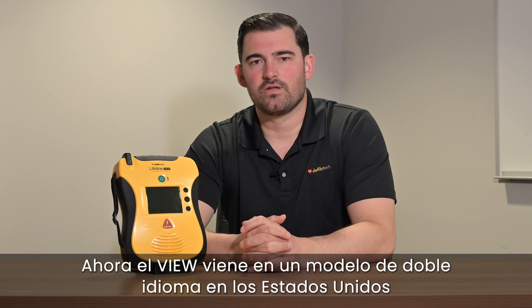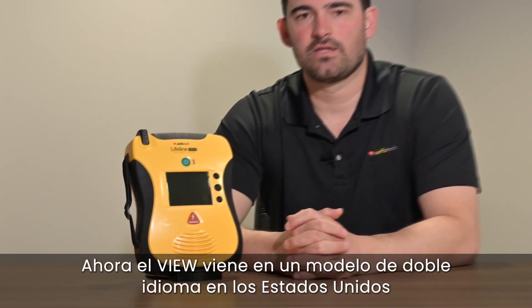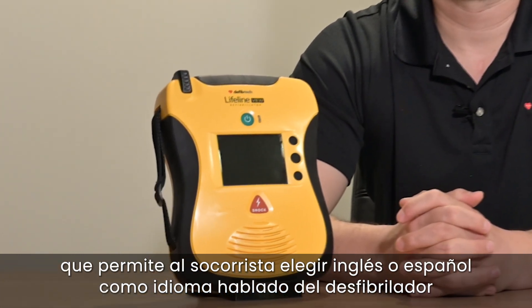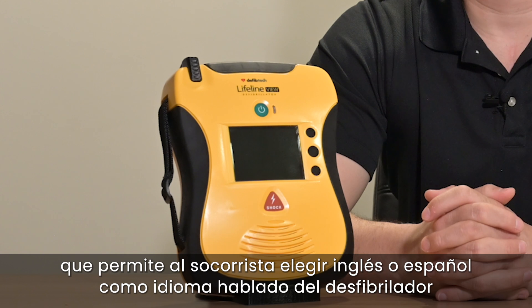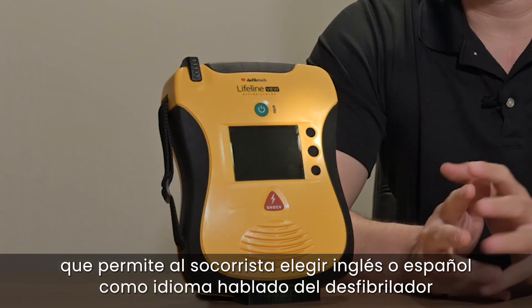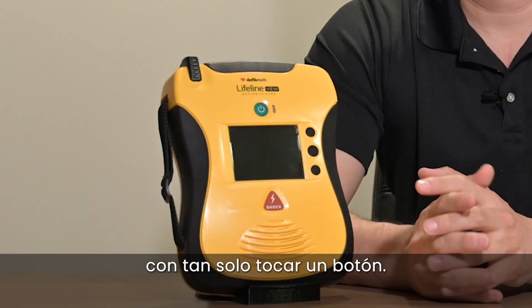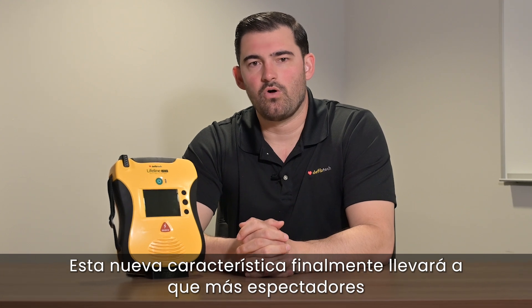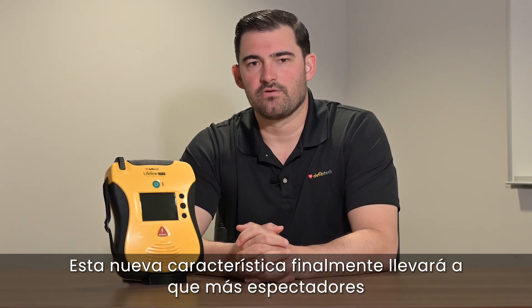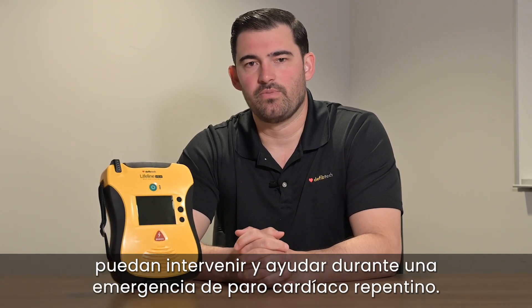The View now comes in a dual language model in the U.S. that allows a rescuer to choose English or Spanish as the spoken language of the AED with the simple touch of a button. This new feature will ultimately lead to more bystanders being able to step up and help during a sudden cardiac arrest emergency.